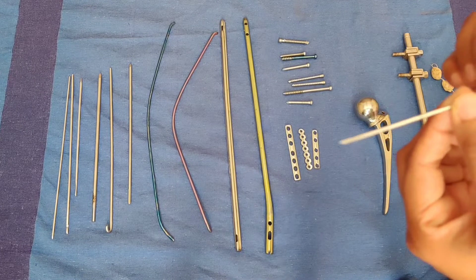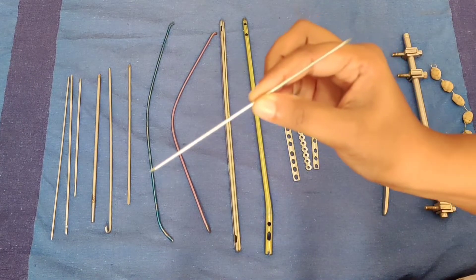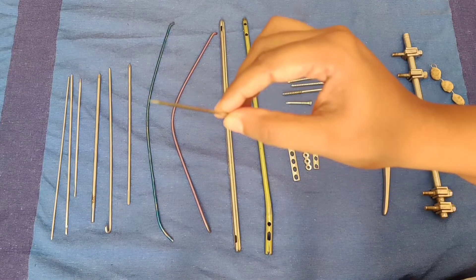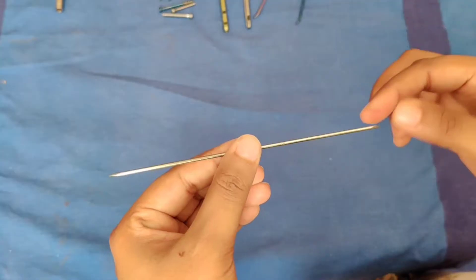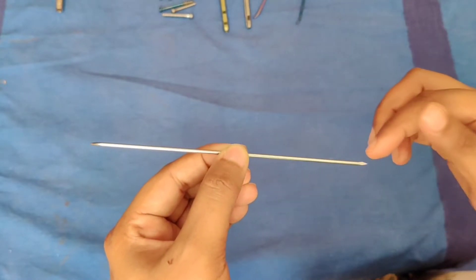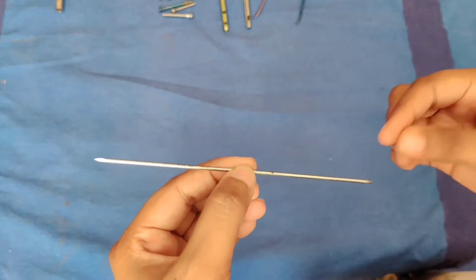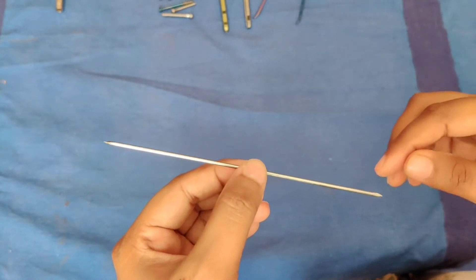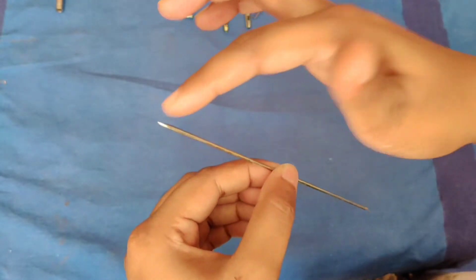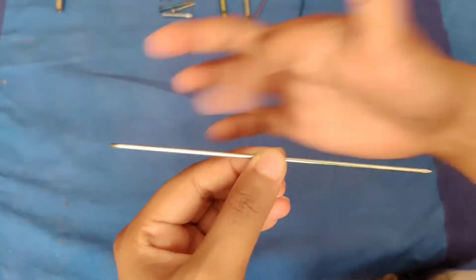Once again about the identification features of a K-wire: both ends of K-wires are pointed and it has a rounded cross section.